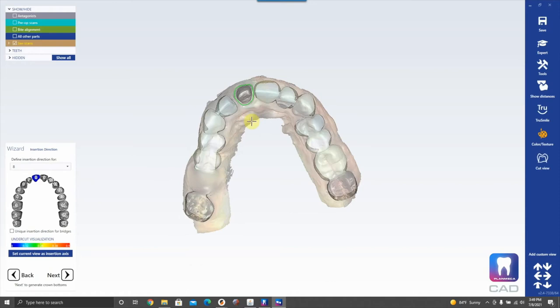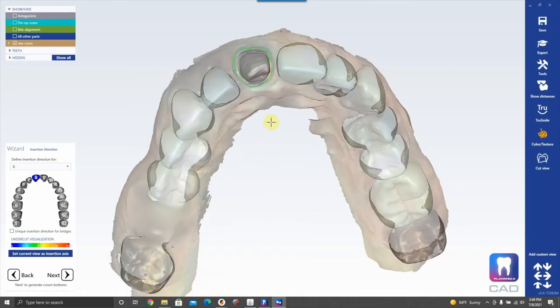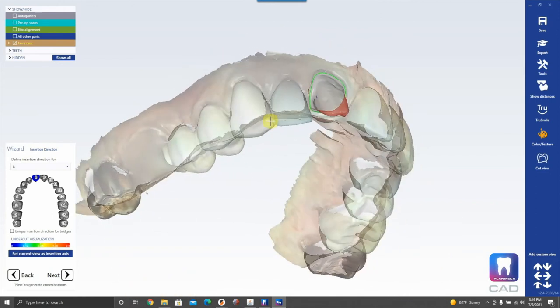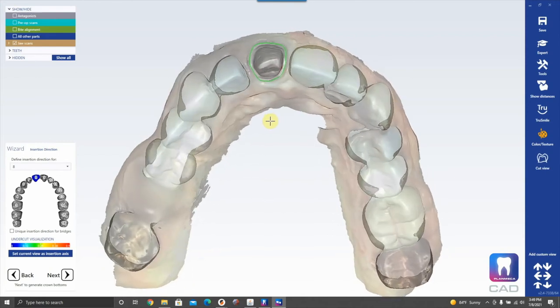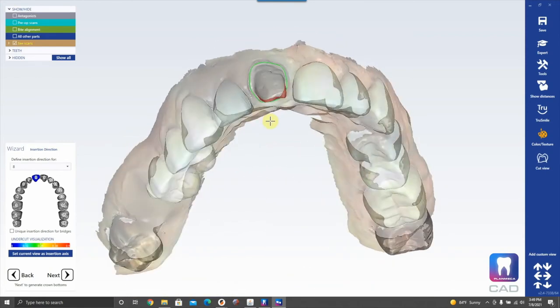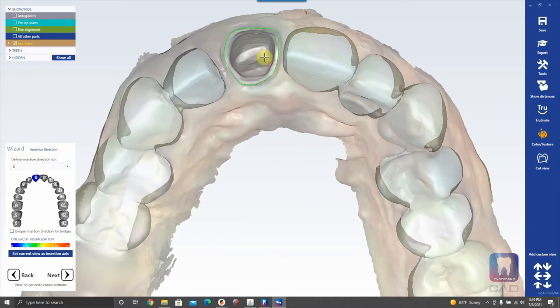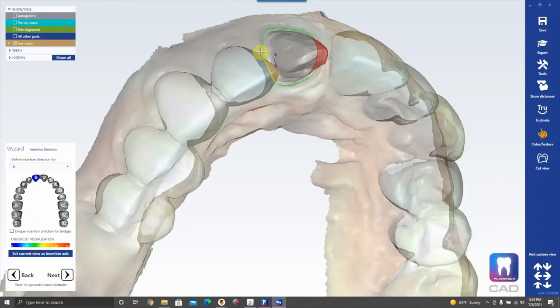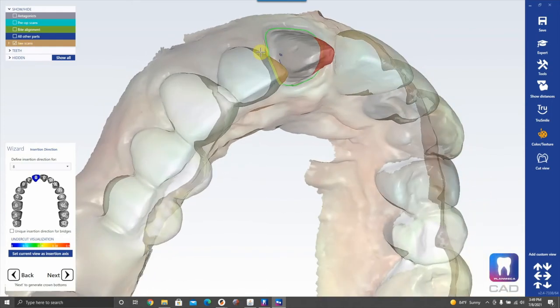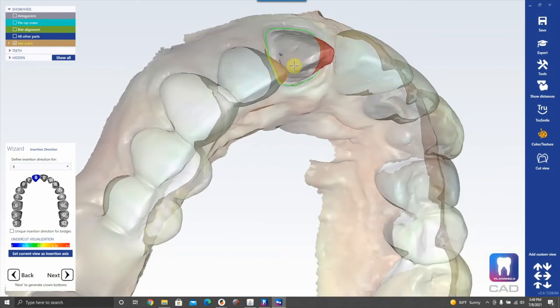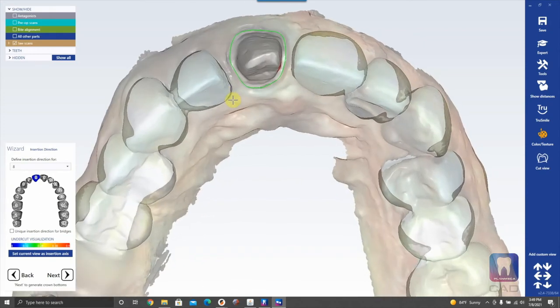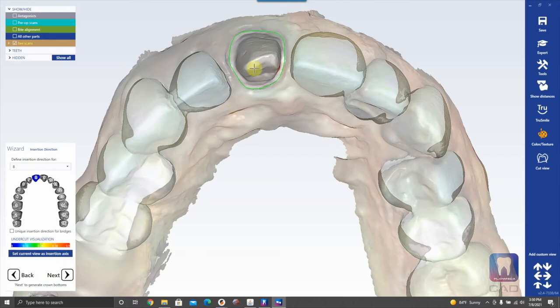Next is picking the path of insertion. As you rotate the model, red undercuts appear; orange indicates interference with the adjacent tooth based on this path. The software usually picks a great default, but rotate around to minimize red undercut. You don't have to eliminate all of it — some undercuts will be automatically blocked out. You want to look straight down the tooth and see the full finish line all the way around. Lock it in by hitting Set from View.